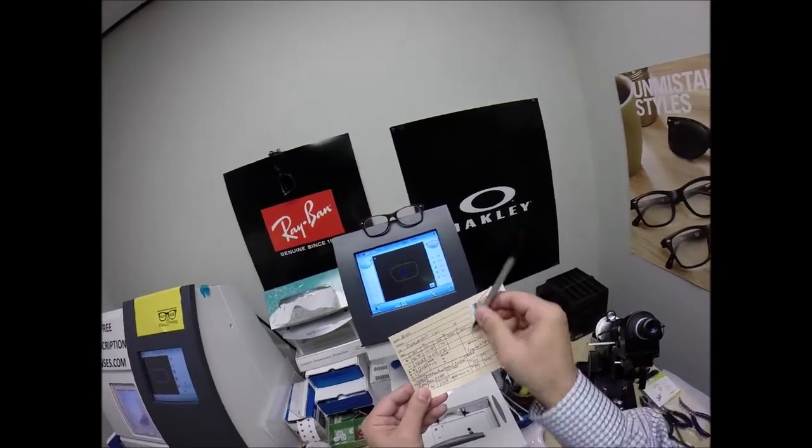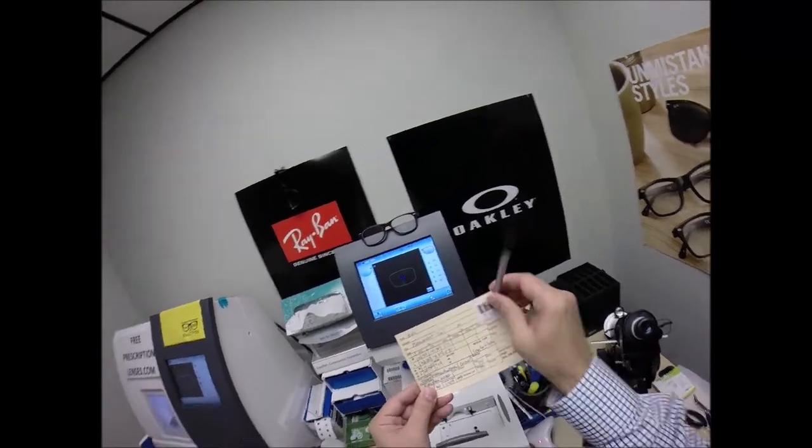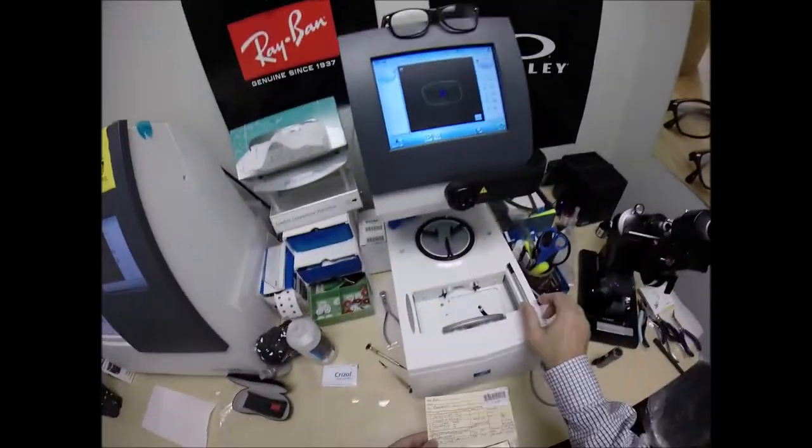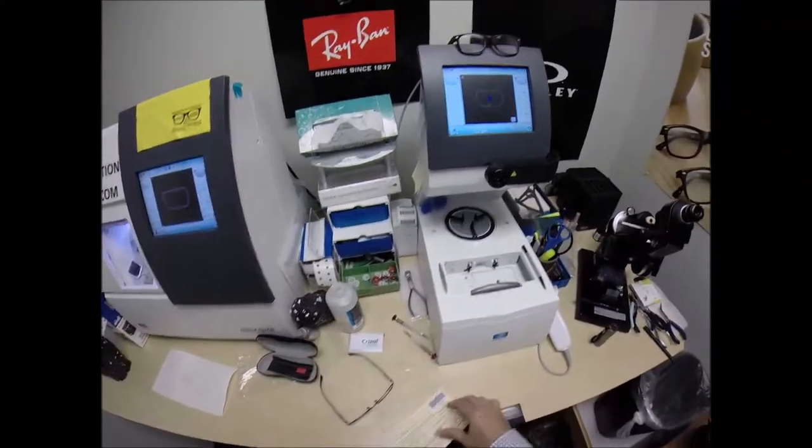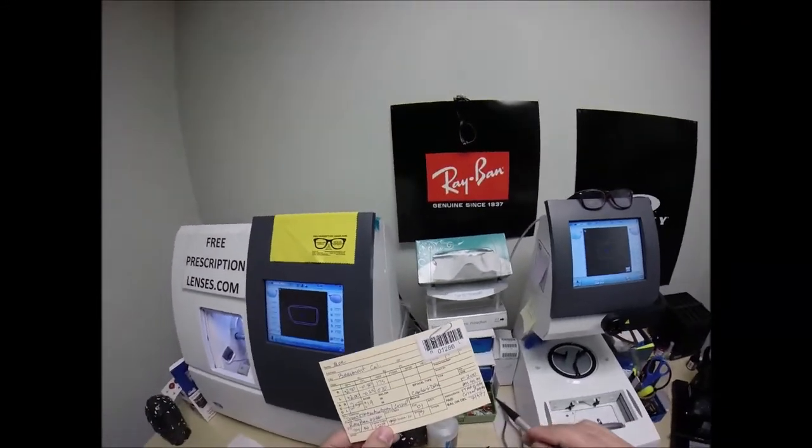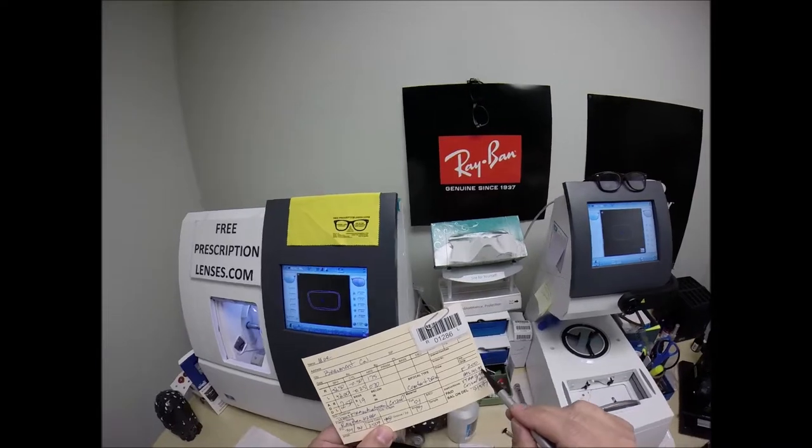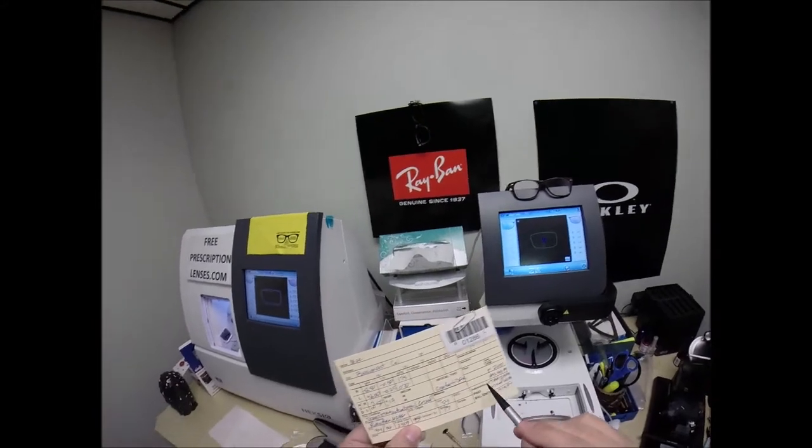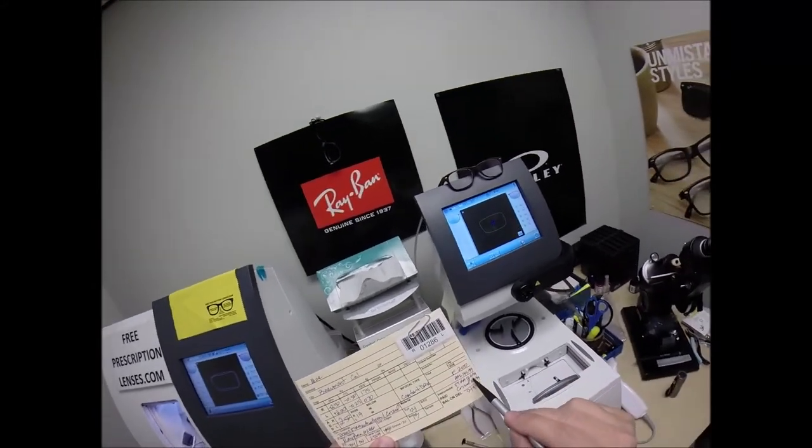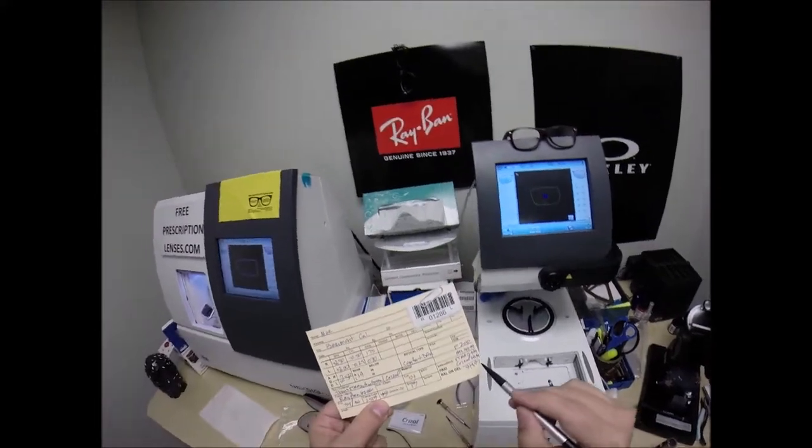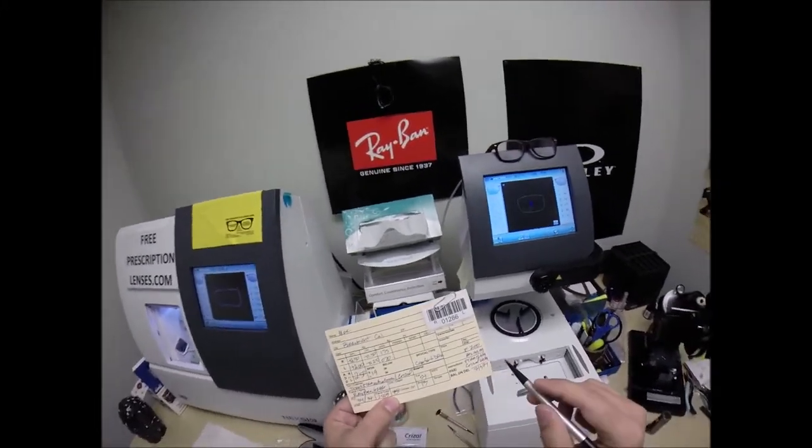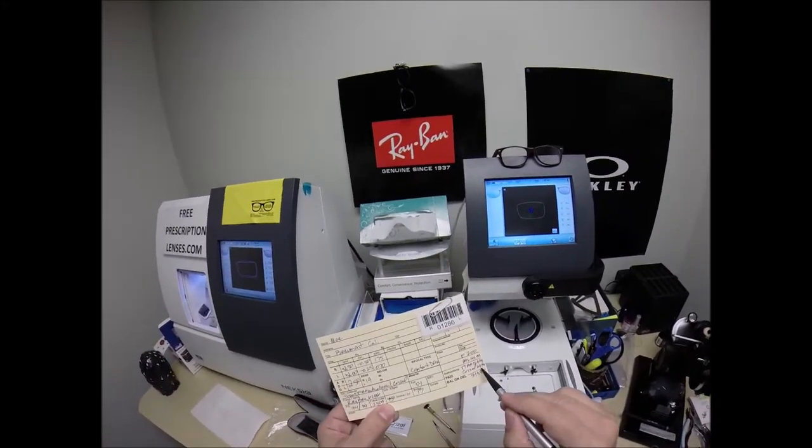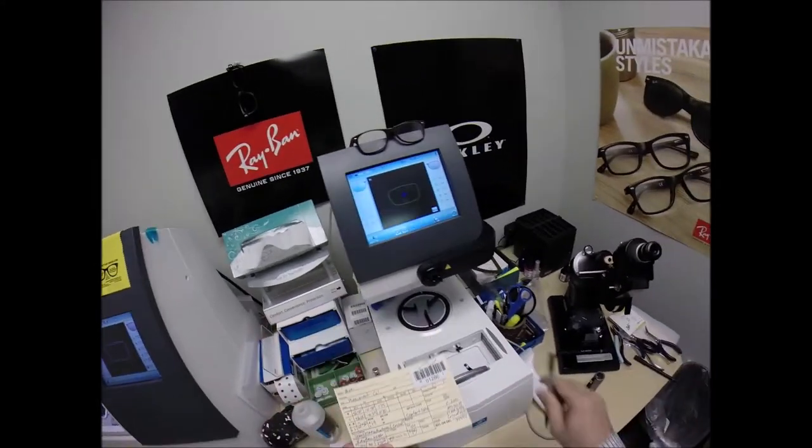I also wanted to mention this frame, the Light Force frame sells for $200. The invisible bifocal sells for $149.99. Transitions extra active in a progressive no-line invisible bifocal normally in gray and brown is $99. In the extra active green, it is $129.99 until prices drop. Sorry, I got to charge more for that one, but they charge me more. So, I'm passing it along. And, of course, the Crizal anti-glare is $69.99 for a total of $549.97.